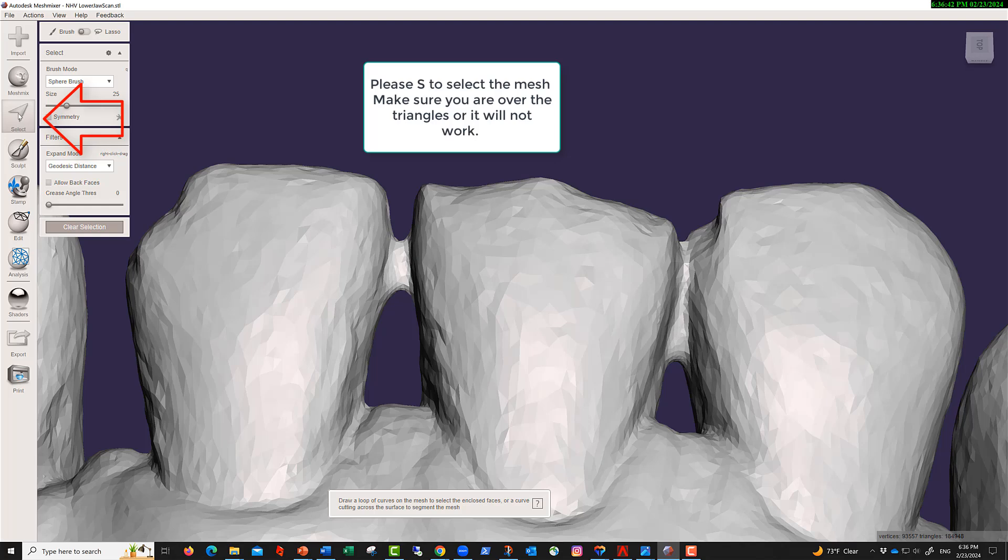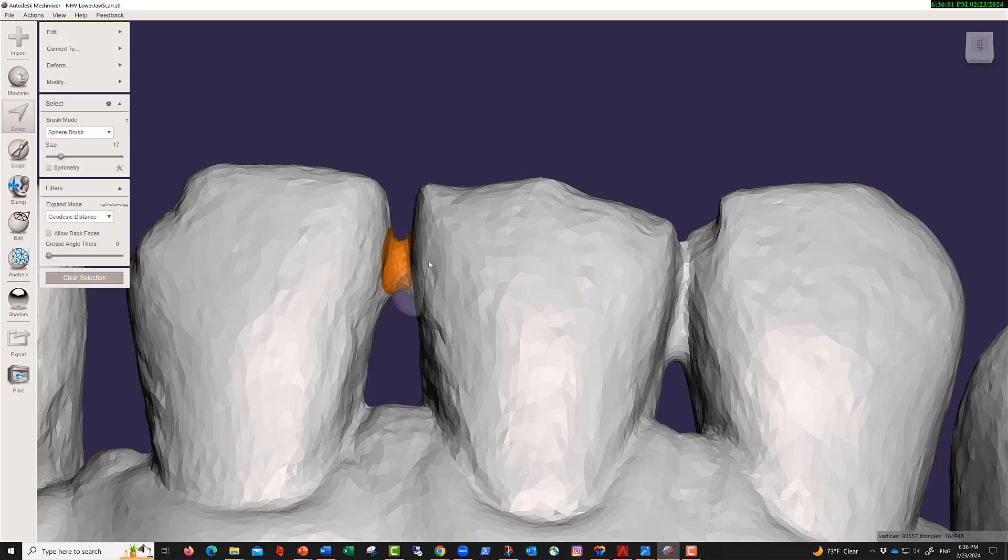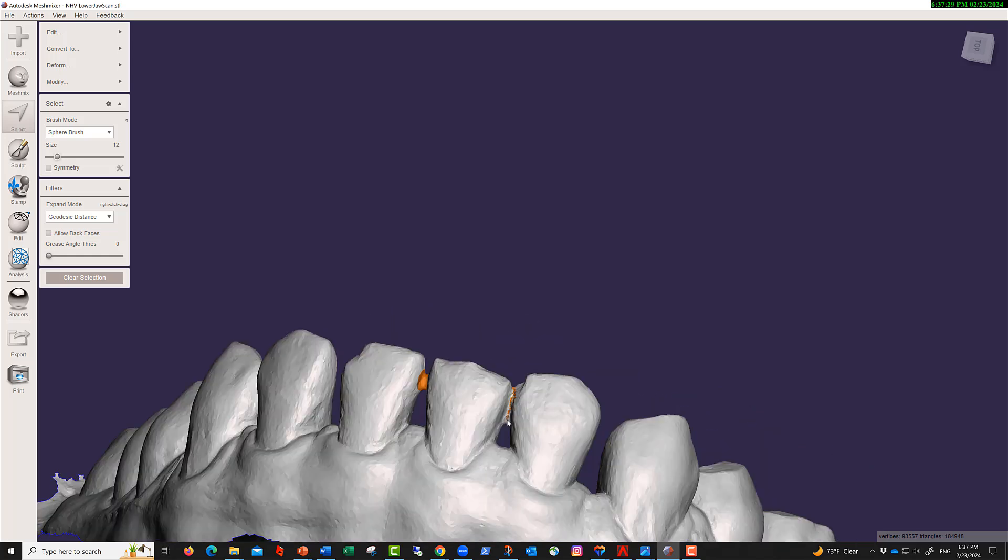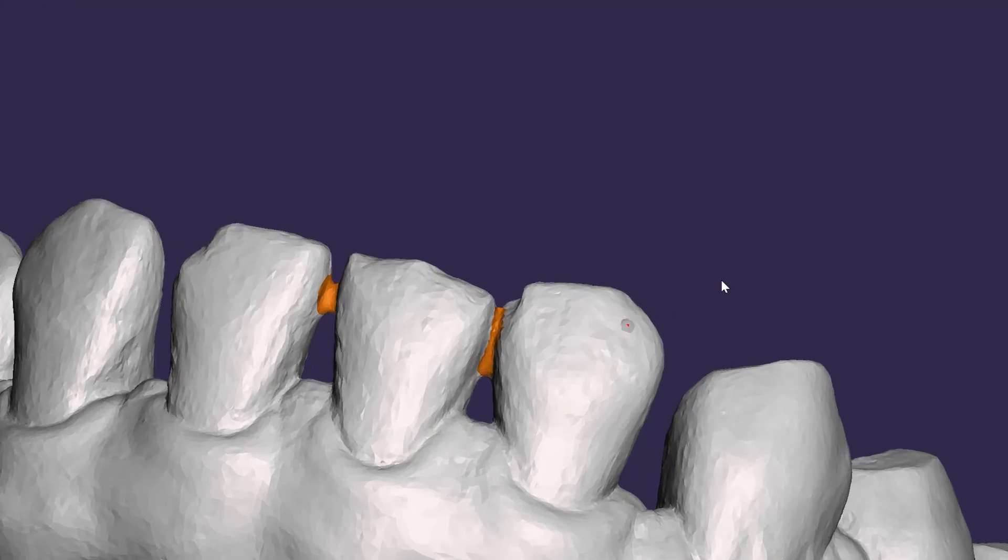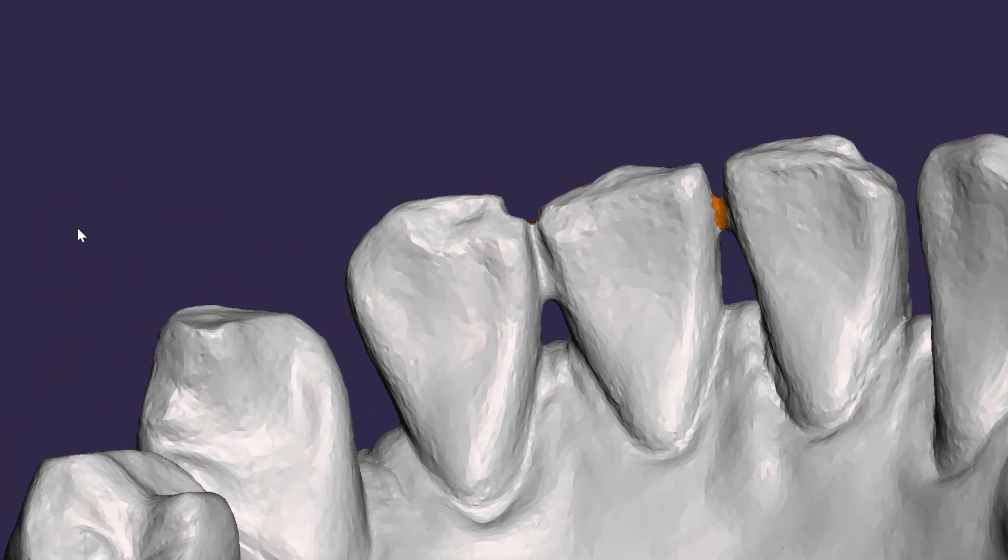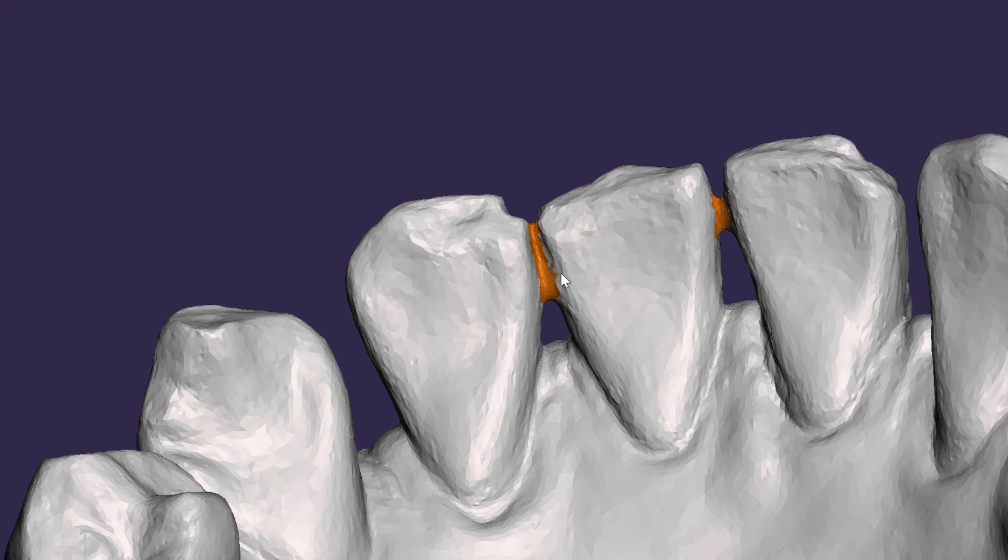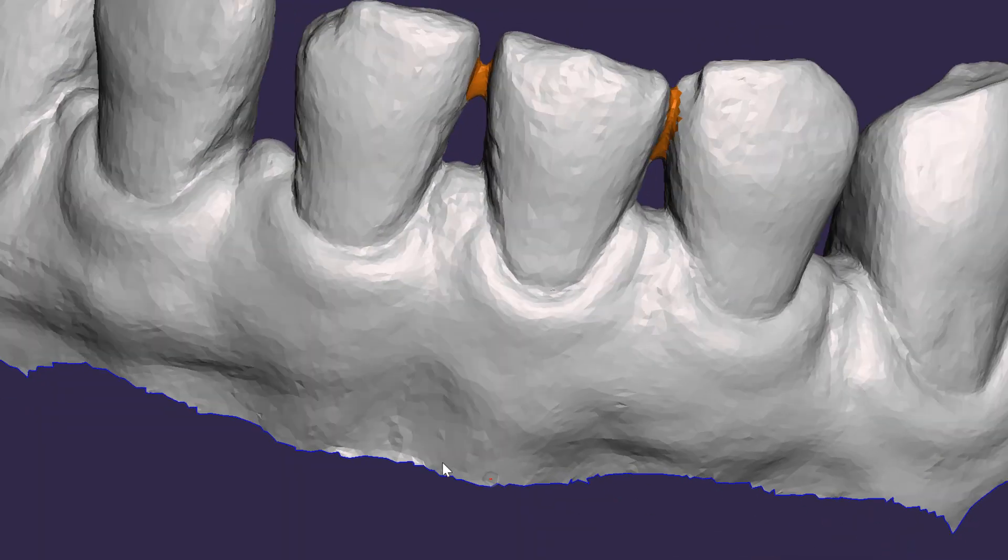This time we're going to use a small selection on the left side like this. So let's select this one. I'm selecting triangles right now. Turning around, make sure you select both sides. Then if you have a small area, you can press shift and remove what you don't like.